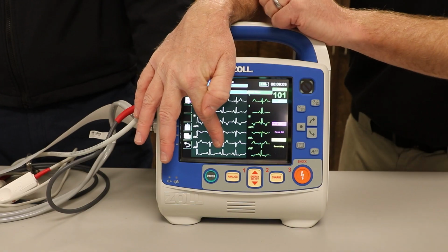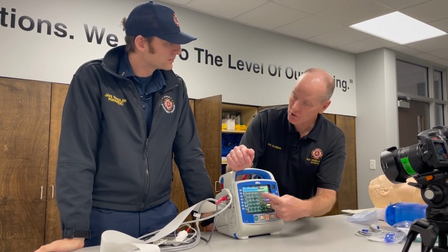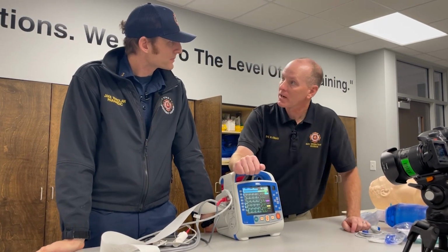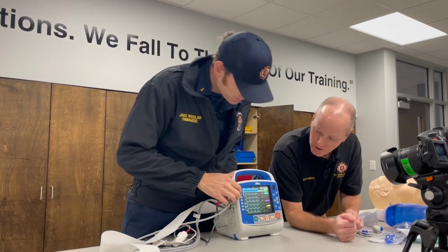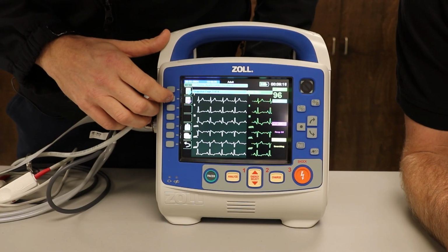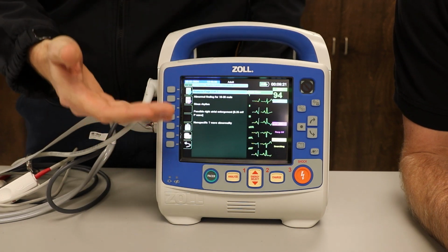This is where they go, well, did your treatment work? Oh, this person's not having a STEMI. They were. It just took you 50 minutes to get on scene to transport my patient. So it's really a beneficial tool. It's an incredible little tool. Just toggle through all of them, and it'll tell you what pages you're on. And then we're back to the actual diagnostic.